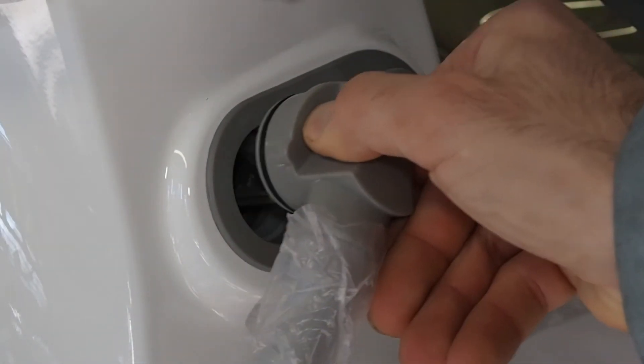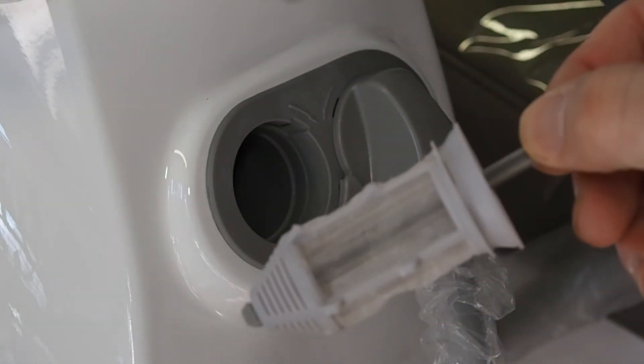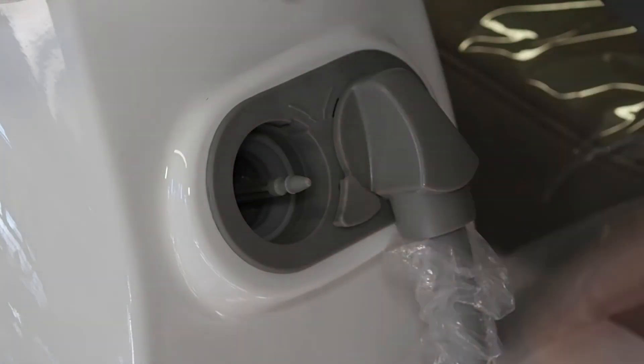Another thing you can check is the cannula filters. They may not be cleaned well.